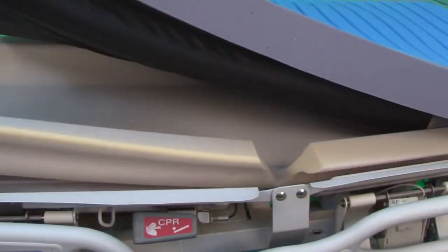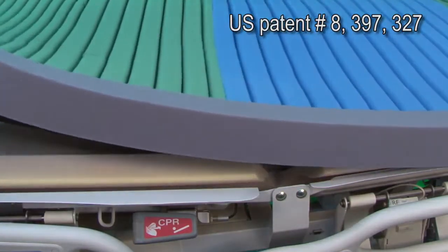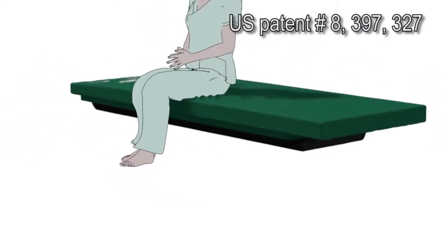An adaptation of our proprietary safety edge two-piece bolster system is a key feature of SPAN's recess deck design. Whether lying or sitting, the safety edge helps to protect the user from falls and entrapment.